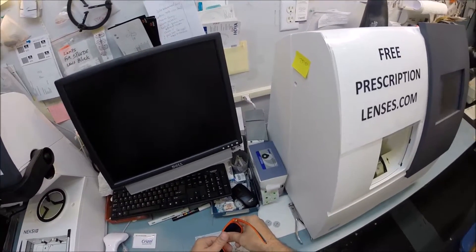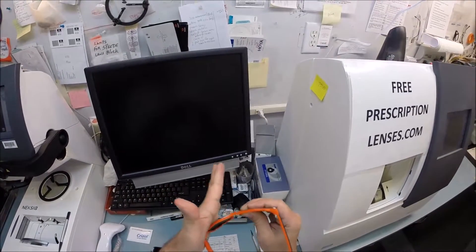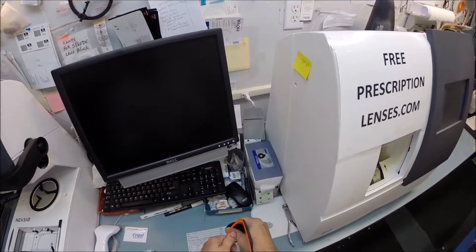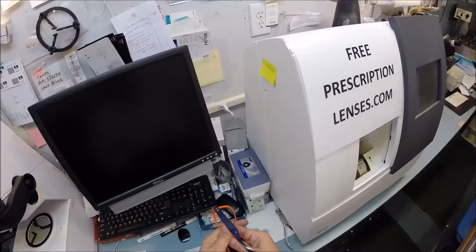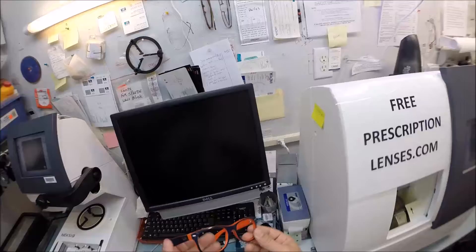I grab the lens by the other side so it doesn't fall on the counter, press down with my thumb, put my other thumb on top, and torque the frame a little bit. You're not going to hurt the frame. Out come your heavy glass lenses.